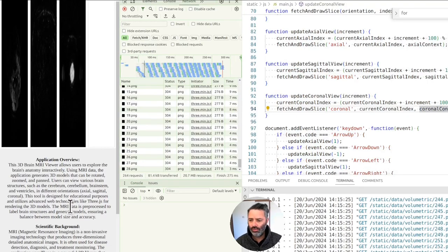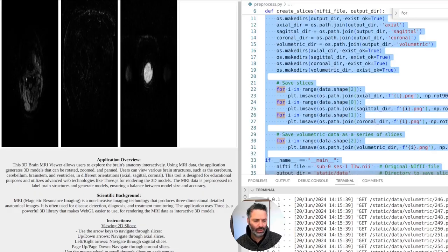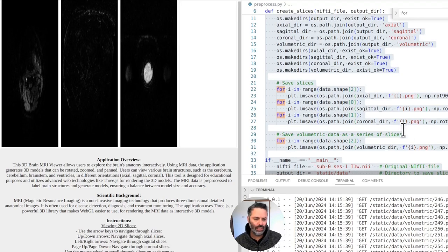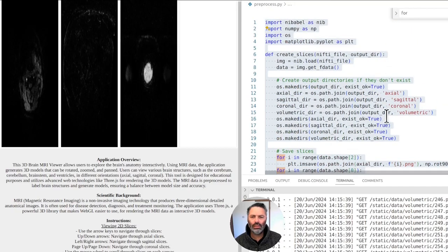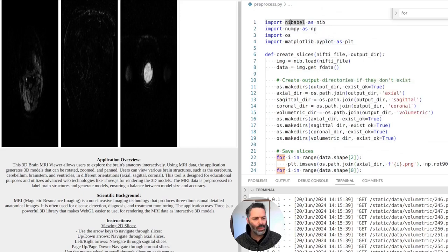We regenerated the code and that doesn't seem to help — no errors. The preprocessing was already explained. Was the data generated correctly to begin with, or do we need to change the preprocessing Python script as well? This one seemed to be correctly implemented — we are loading NIfTI files using nibabel, which creates the output directory, saves the files.